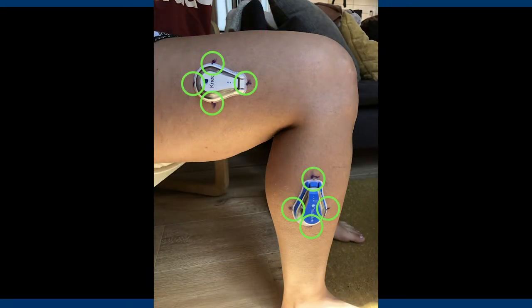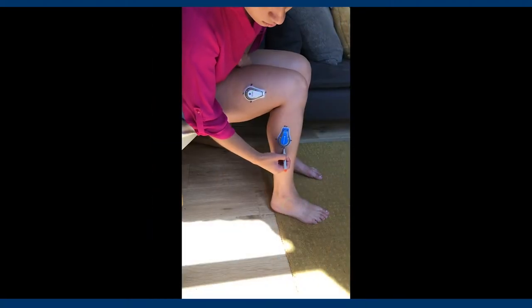On the outer ends of the ADP, you will notice four small notches. You will mark where there is a notch and indentation.